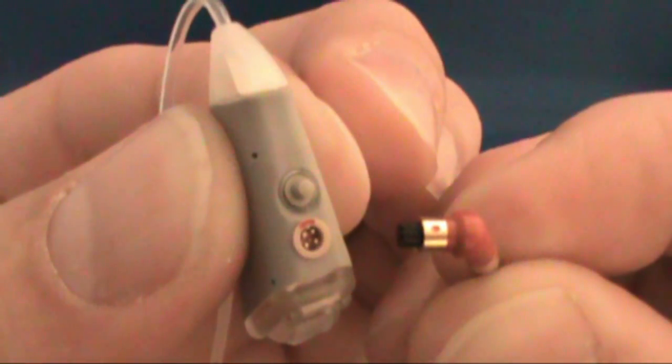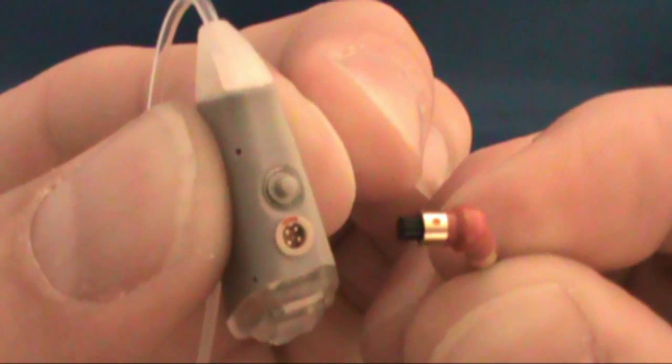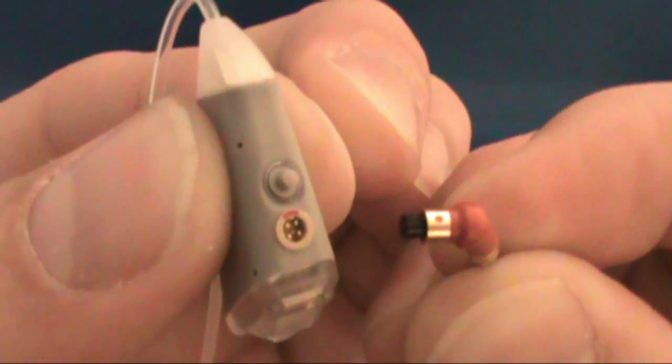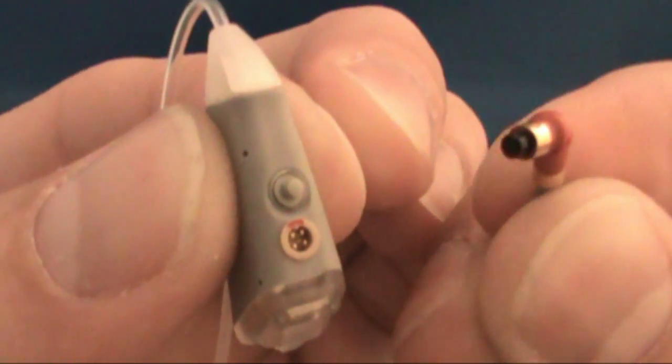The red and blue ends of the programming cables will plug into these ports. Again, red is for the right aid and blue is for the left.